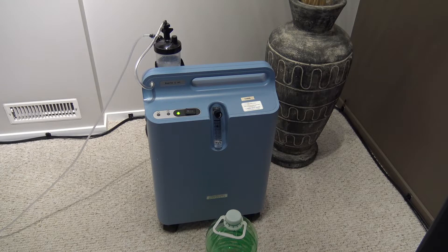So this is what I put up with every day — this noise. But actually after a month and a half, I don't even realize it's on. I put distilled water in there — a little blow there, this is the distilled water.